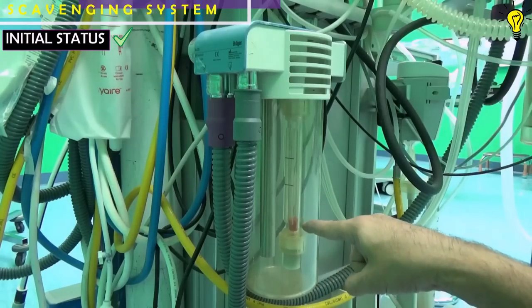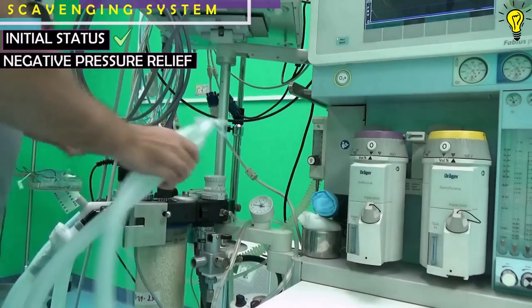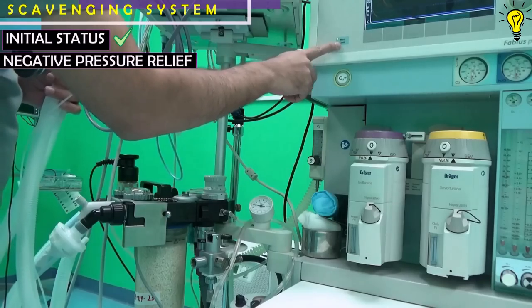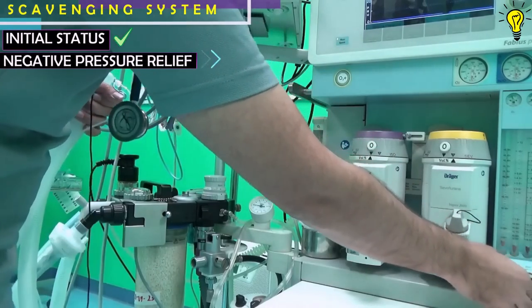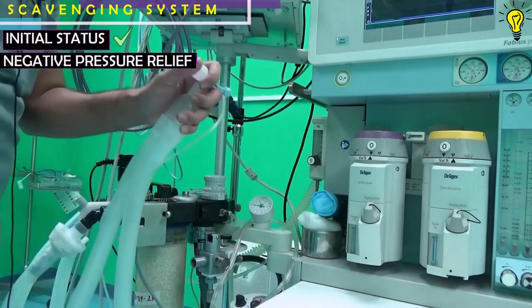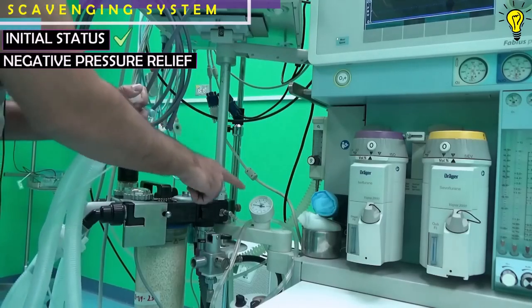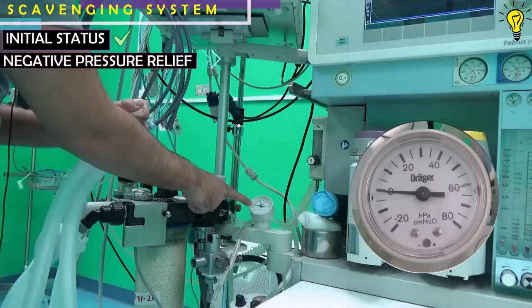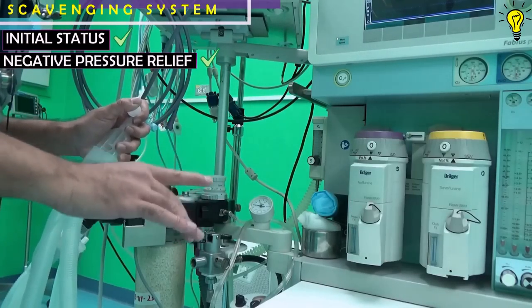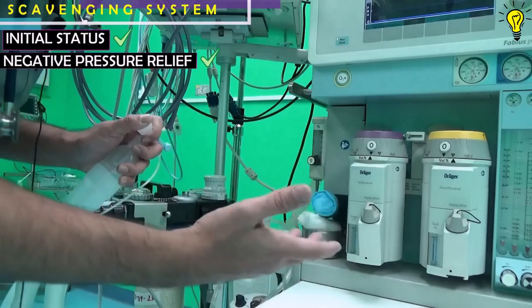During operation, the bobbin needs to be placed within the two indicator lines. To test the scavenger system, switch the anesthesia machine to manual mode, ensure all connections are off, open the APL valve fully, and occlude the Y piece. Wait for the scavenger bag to collapse and make sure that the pressure gauge reads between 0 to a maximum of minus 0.5 — it shouldn't exceed more, because that negative pressure could be transmitted to the patient's lungs.